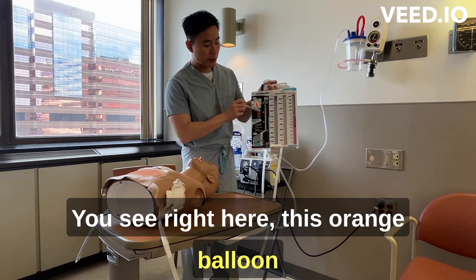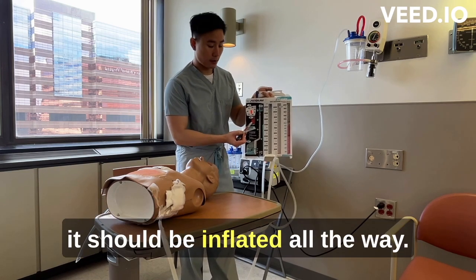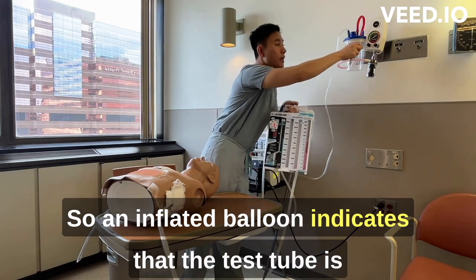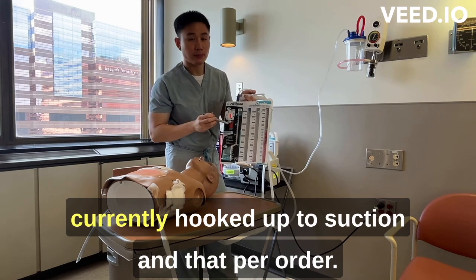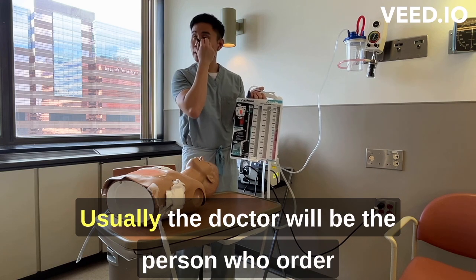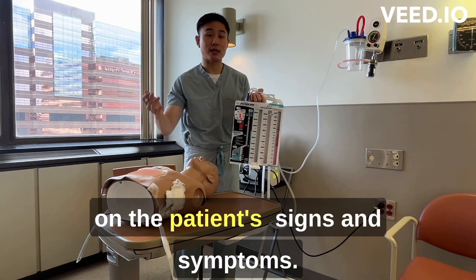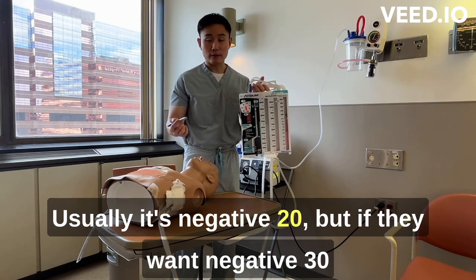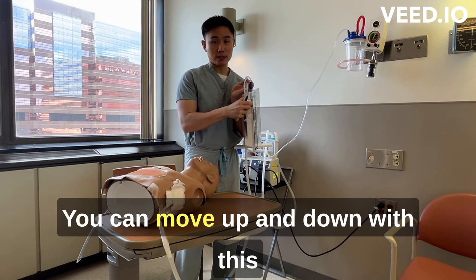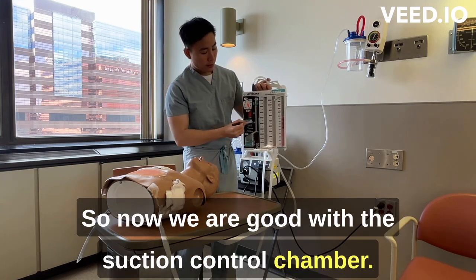You will see the orange balloon in the suction control chamber — it should be inflated all the way. An inflated balloon indicates that the chest tube is currently hooked up to suction as ordered. If you turn the suction off, the balloon will not be inflated at all. Next, look at the dry suction control chamber — the doctor will order how much negative pressure they want, usually negative 20, but it can be negative 30 or 40. You can adjust the negative pressure using the compartment on the right side of the chest tube.